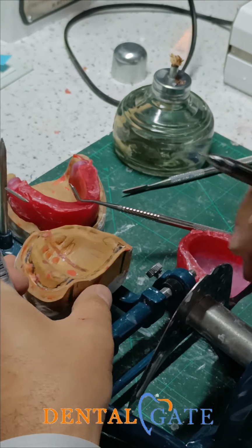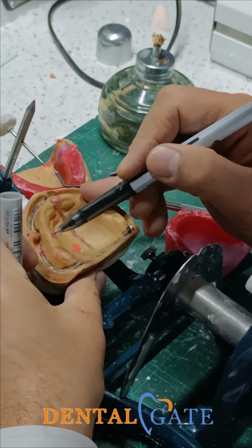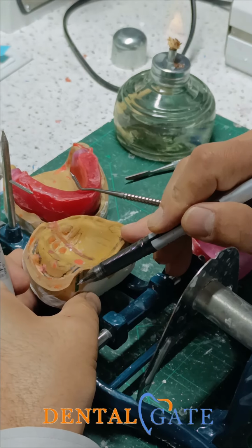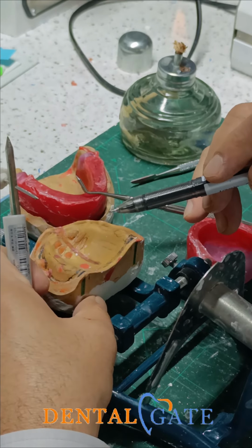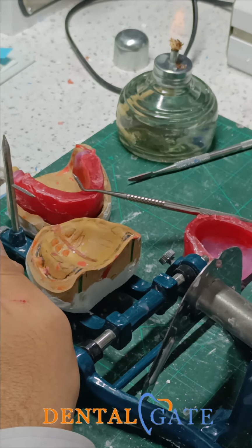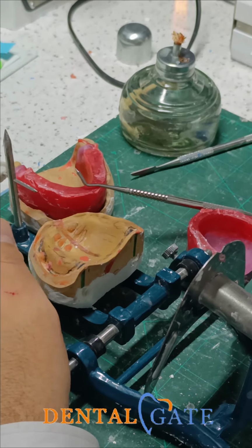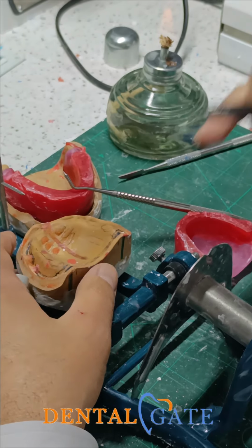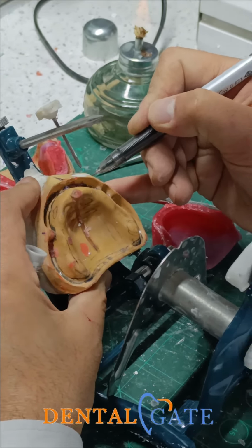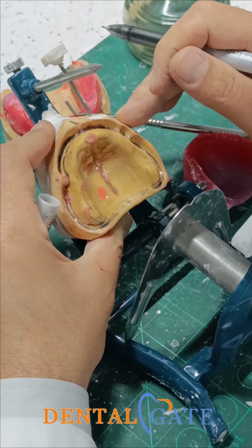Okay. So regarding the lines that we will mark on the cast, we need to make this line upon the crest of the ridge, which will represent the center of the ridge. It will be substantially used in the arrangement of posterior teeth. Okay? To be sure there is no deviation from the center of the ridge. And we have the canine eminence. You can make a mark for the corner of the mouth, that will refer to the corner of the mouth.